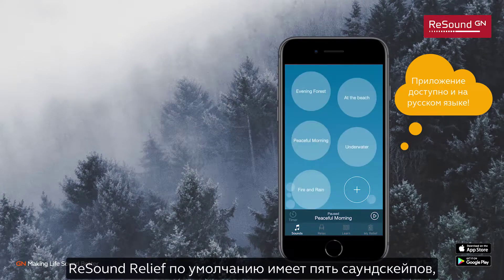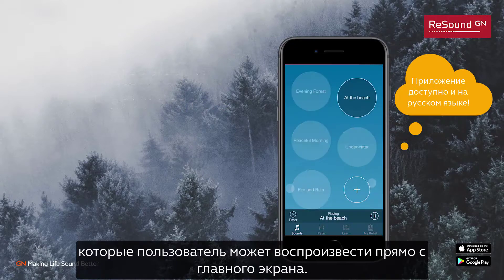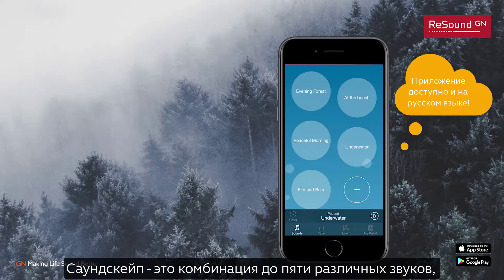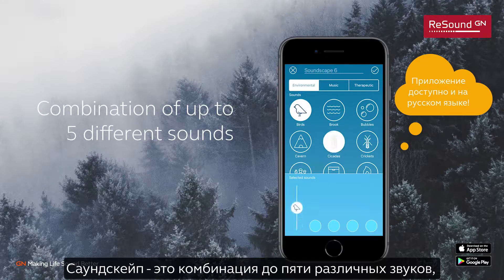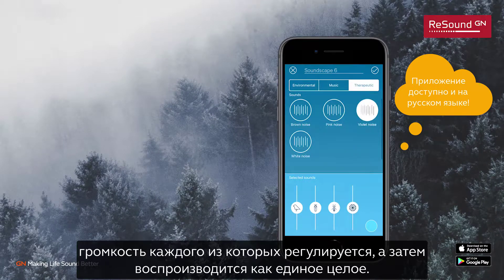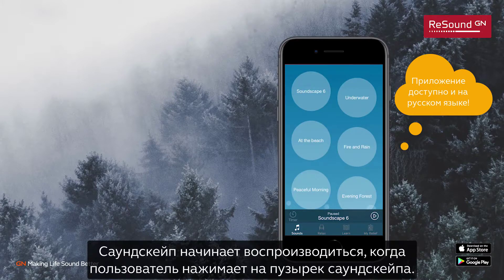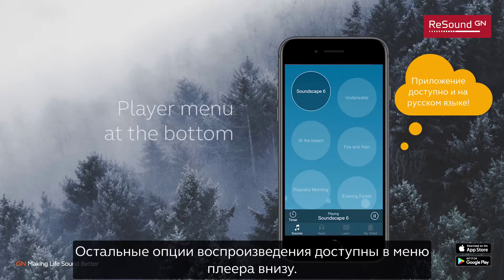ReSound Relief comes preloaded with five soundscapes that the user can activate directly from the main screen. Each of the big bubbles contains a soundscape — a combination of up to five different sounds adjusted to specific volumes and played on top of each other. The soundscape will start playing when the user presses a soundscape bubble.